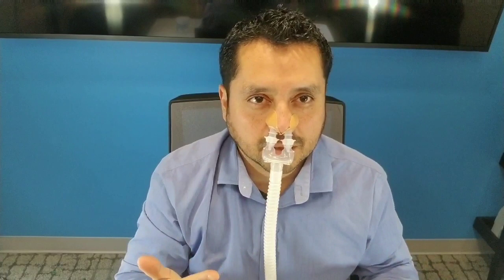If you have to get up in the middle of the night for whatever reason, just disconnect the hose from the mask right here. Putting these things on and off in the middle of the night is going to be a little bit difficult. Notice there were no leaks around here. I was moving the tube around, pulling on it, and absolutely no leaks.